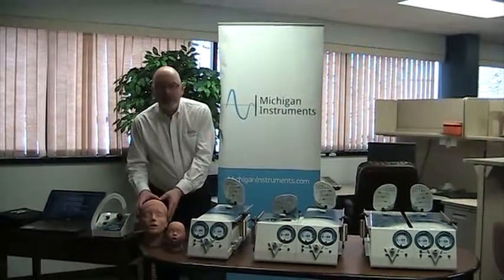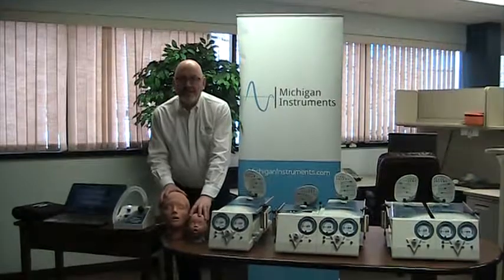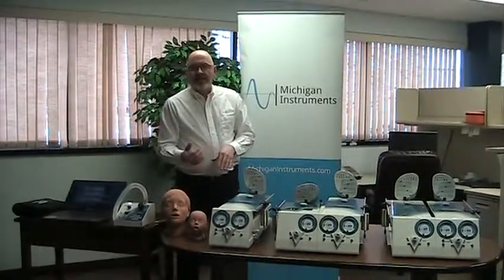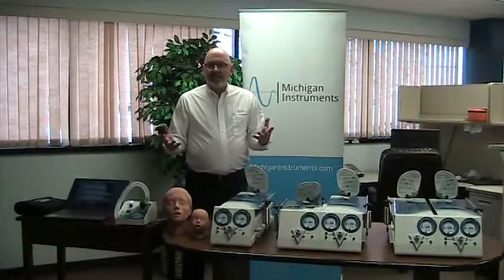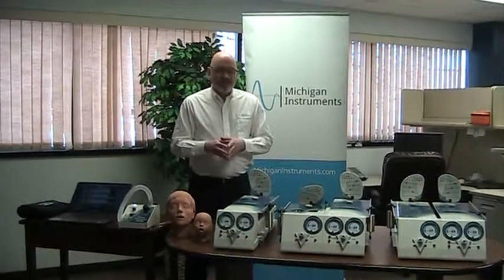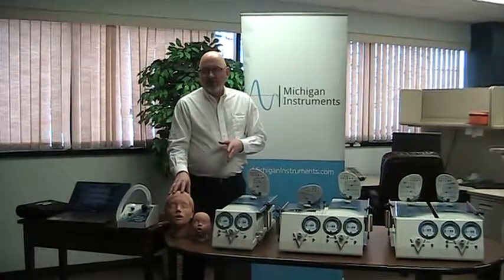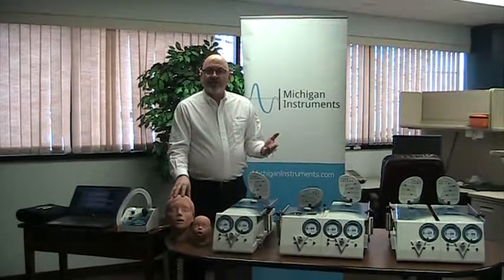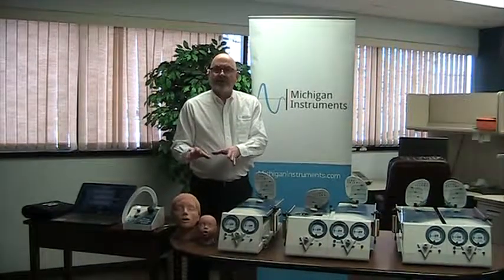We offer two head simulation modules, an adult and an infant. These modules can be added to any of the test lungs and it just expands the possible applications that can be used for the different models. These are also compatible with the older versions of TTL and NuView, so regardless of whether you have new or old products, the head simulation modules can be a very handy accessory.